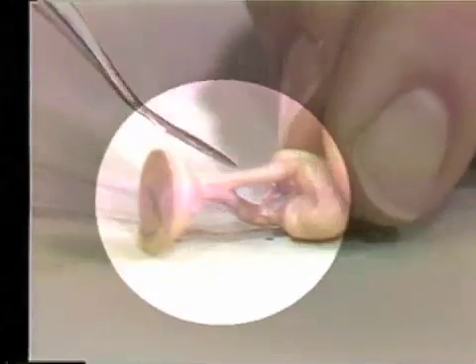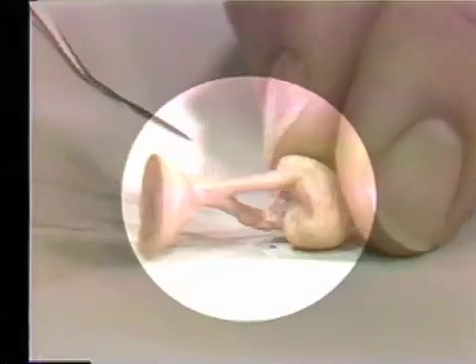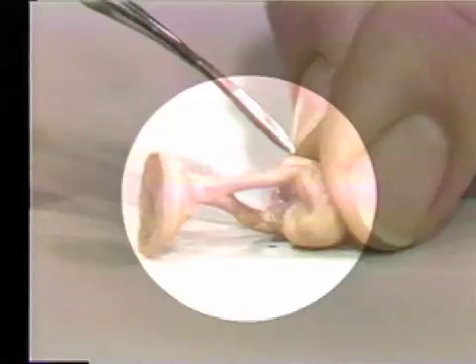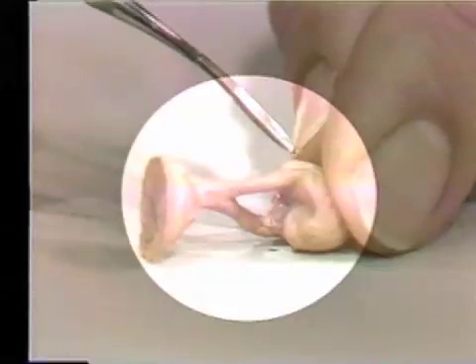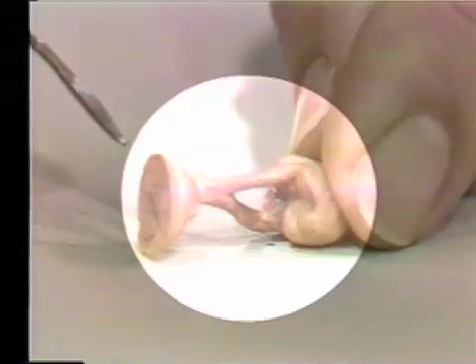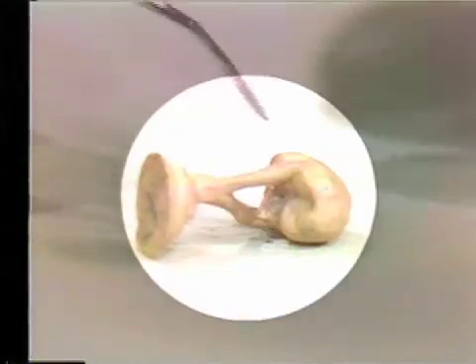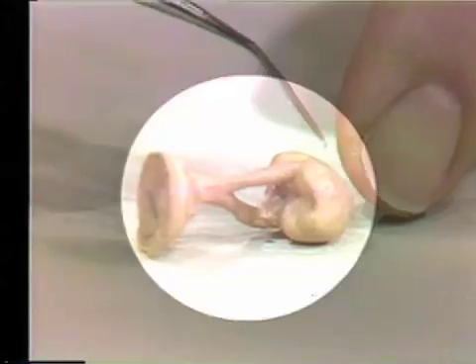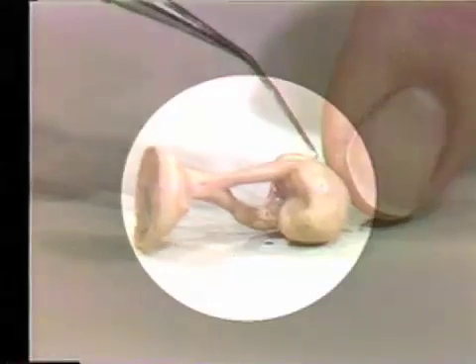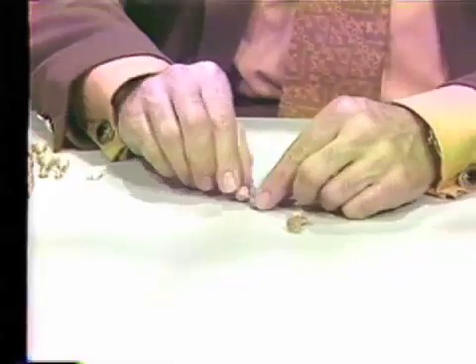Or one may have to use some vents. Vents are additional sprues — another piece of wax that you can attach here and take to the outside — to carry some of the hot gases out and help the pontic freeze a little bit sooner. Here is one with a vent.